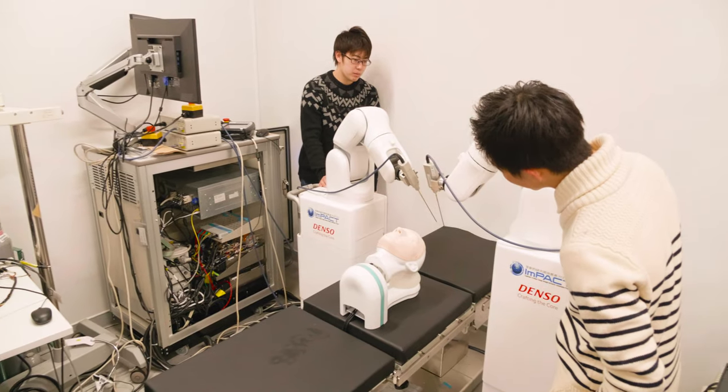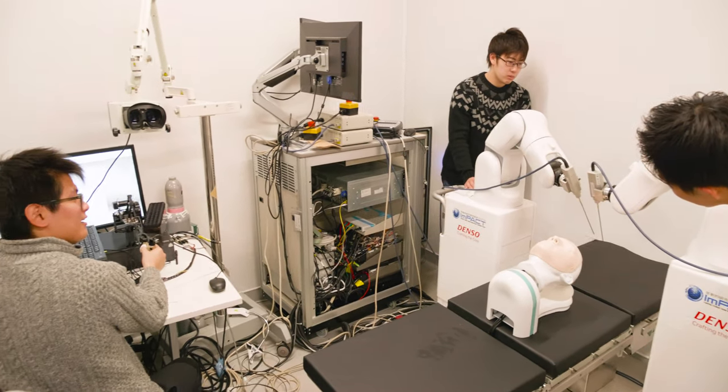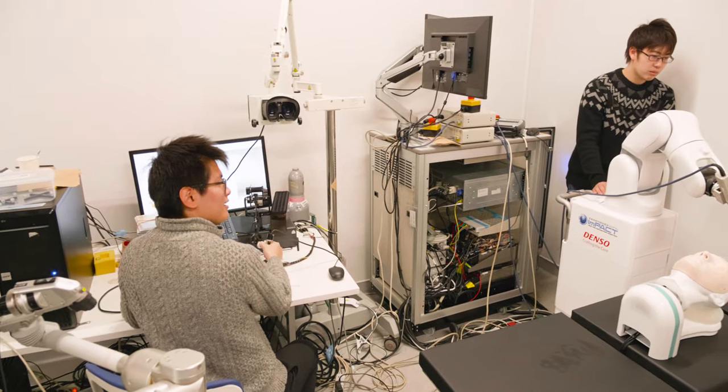I'm very happy when surgeons give positive comments on the students' work. What makes our robots so special is we are trying to blend human skills with AI-based automation.